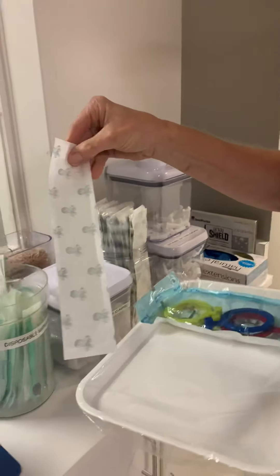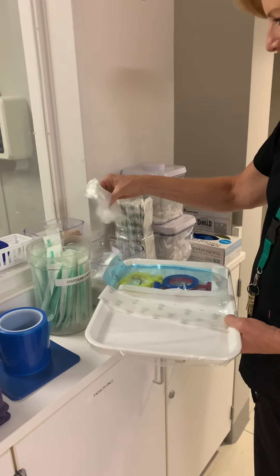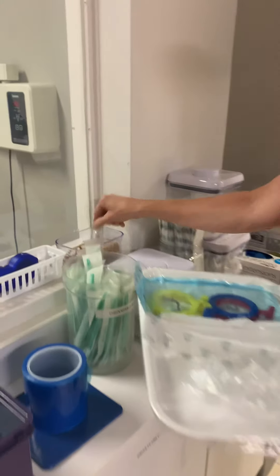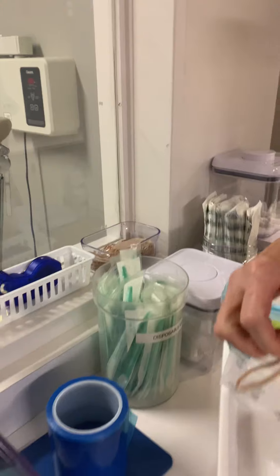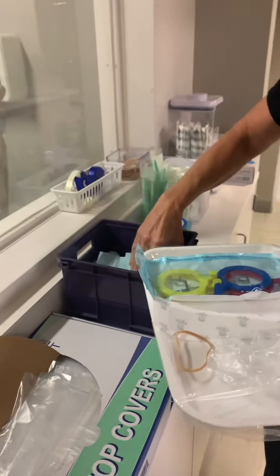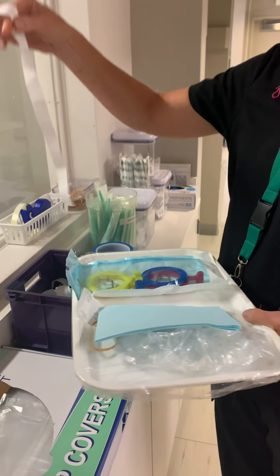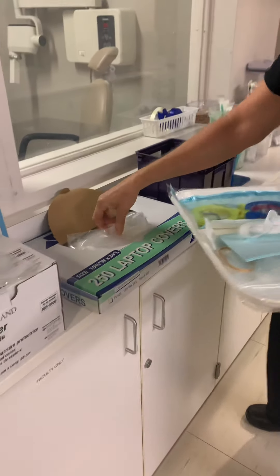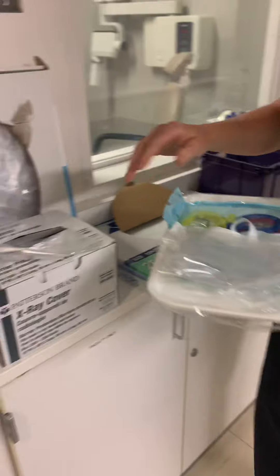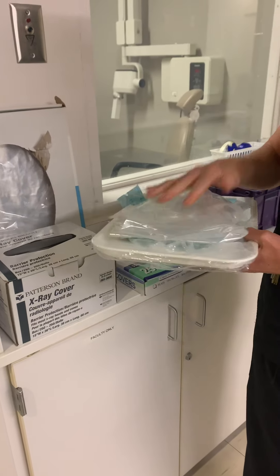She's grabbing the barrier for the center, and she's going to grab a shower cap for the headrest. She's going to grab a rubber band — we'll show you where that goes — a patient napkin and a napkin holder, which is called a Bibby's. We need a laptop cover to go over our computer in the room, and we also need an x-ray head cover to go on the PID, which is the positioning indicating device.